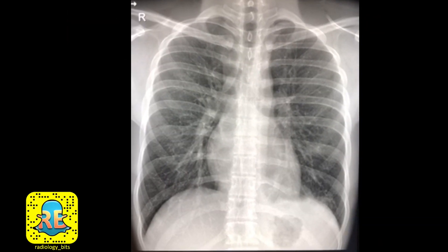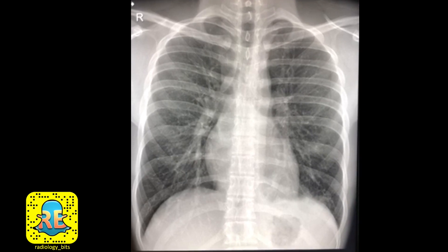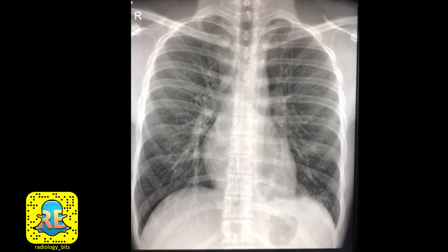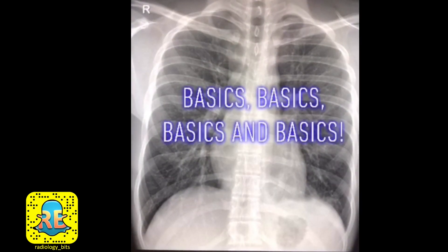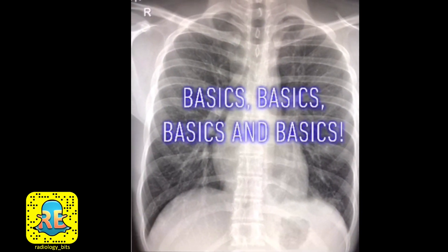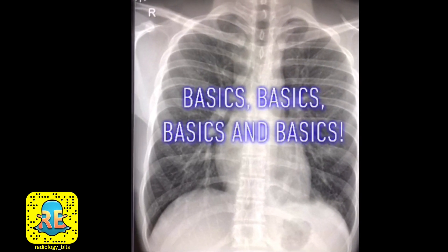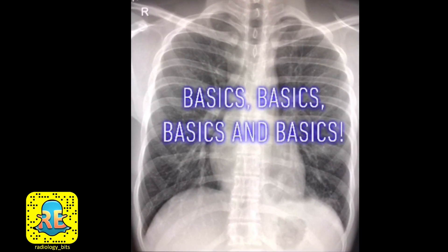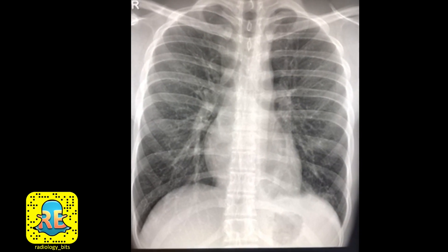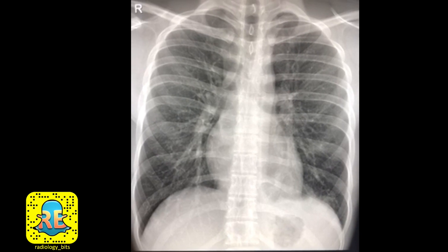Hello again everybody. It's been a while since a case has been posted, so this is a good basic case to restart with. This case is useful for juniors but it's also extremely important for seniors to refresh these basic concepts. This is your typical chest radiograph in a patient who presents with cough, where you're looking for features of pneumonia.